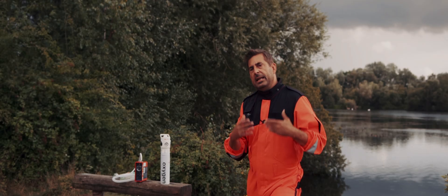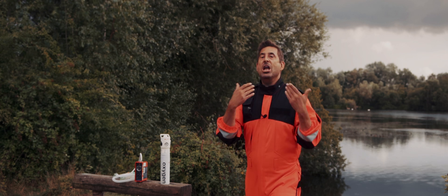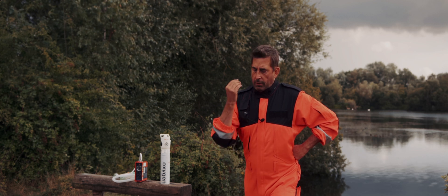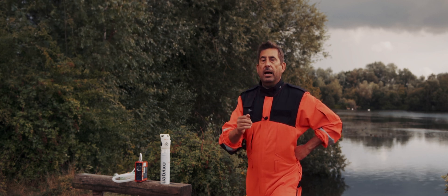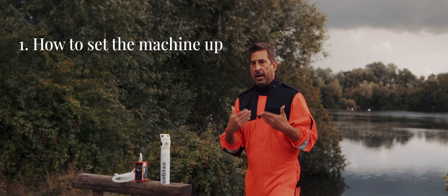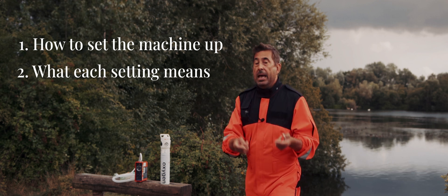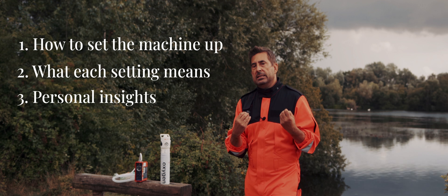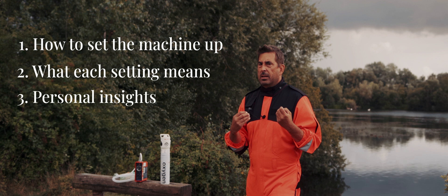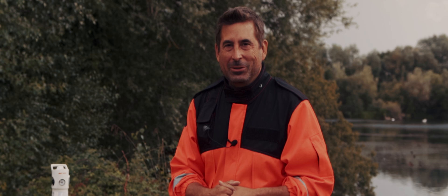If you've just found yourself standing in front of a cardiac arrest patient and none of your lecturers ever bothered to teach you how to set up a simple volume ventilator — relax, I've got you covered. First, I will show you exactly how to set the machine up, then I will break down what each setting actually means and share some personal insights into mechanical ventilation in the pre-hospital setting — the kind of stuff no AI or textbook will ever tell you. Let's get to it.